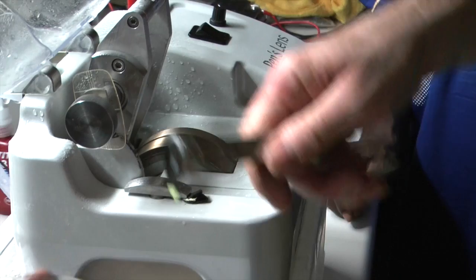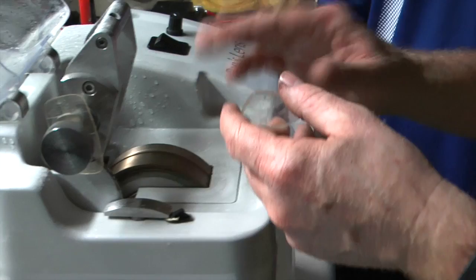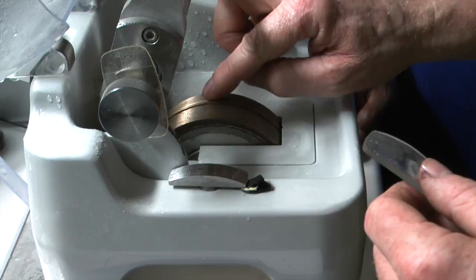You can see the line which is the axis of the lens - it's quite nice and horizontal. We're now going to use the machine to put the bevel on, and we need to do it on this wheel. This is a special wheel which has a type of bevel that helps us control the position of the lens while it's cutting the bevel. It's called a feathered wheel - it's got a slightly different shaped bevel than a lot of machines have, but it's very good when you're doing it manually.